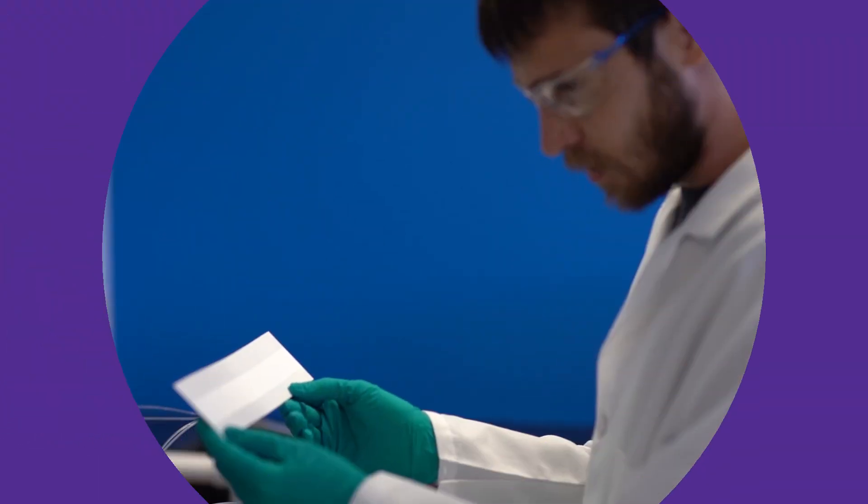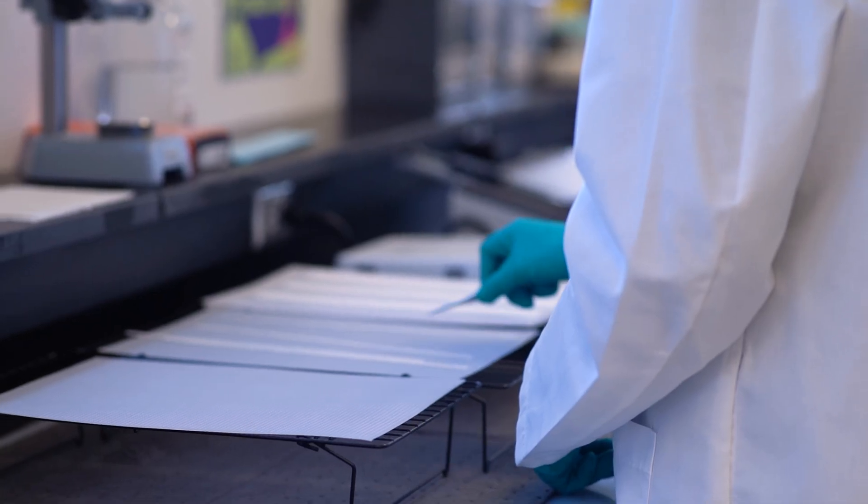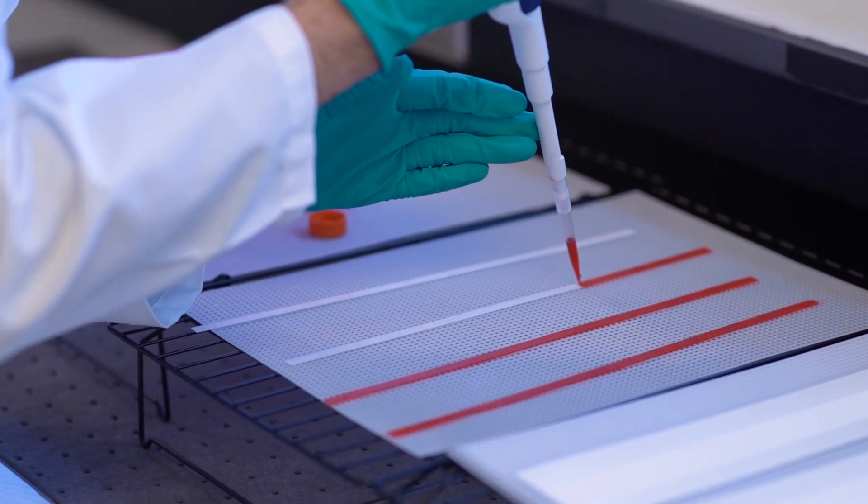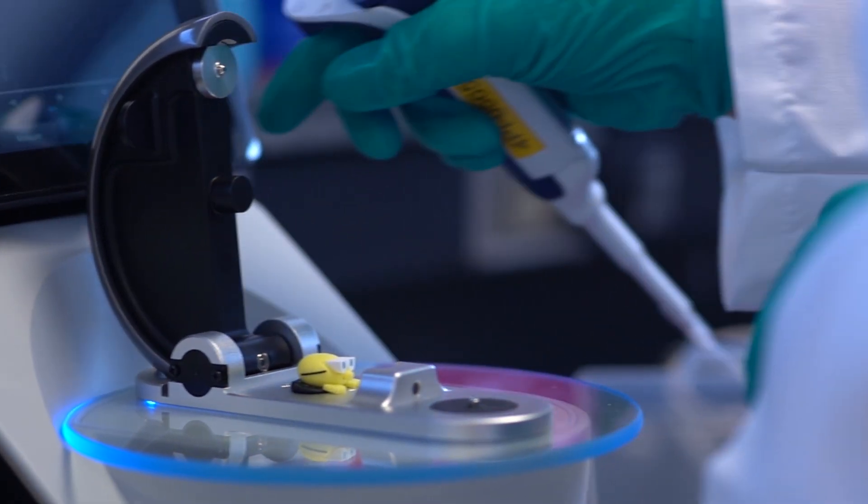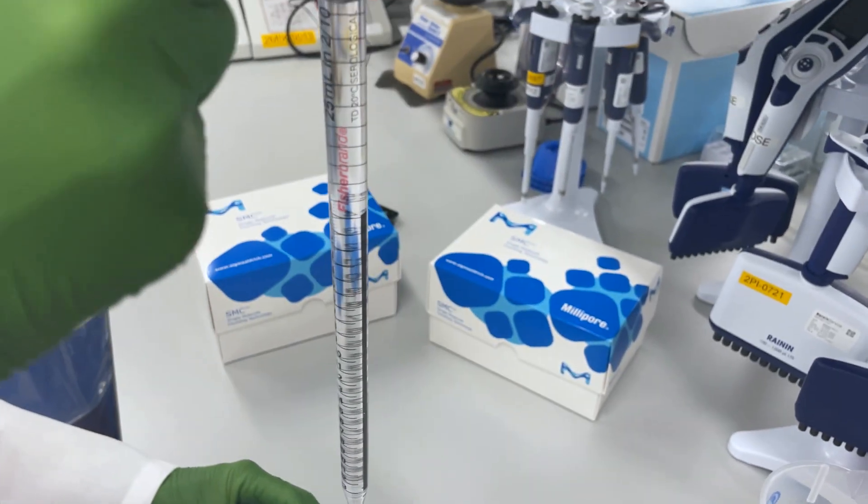In addition to raw materials, Millipore Sigma offers expertise in specific challenging areas, including membrane choice and optimization, antibody development, conjugation and optimization, and buffer formulations.